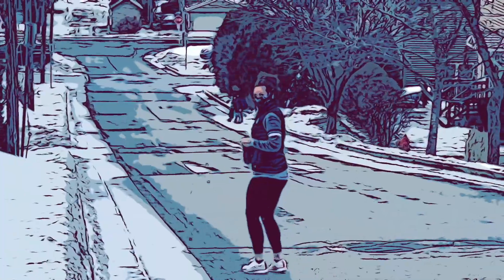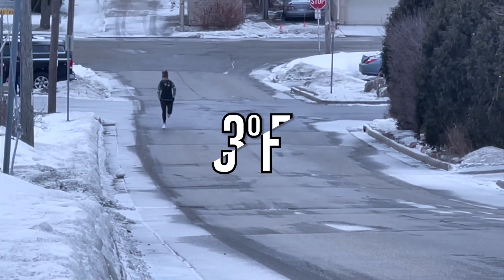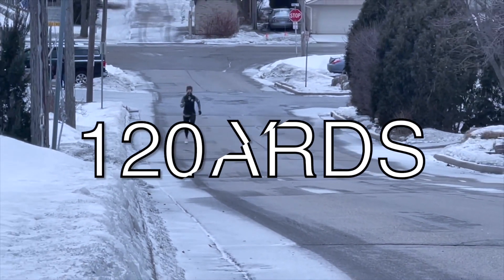Kristen was like, 'Oh, that flow meter is so cool — let's see what my inspiratory flow rate would be after I run up the hill.' We've got this crazy hill on the side of our house. So she's going to run it and then we're going to measure her inspiratory flow rate. Here she comes — this is an all-out sprint.